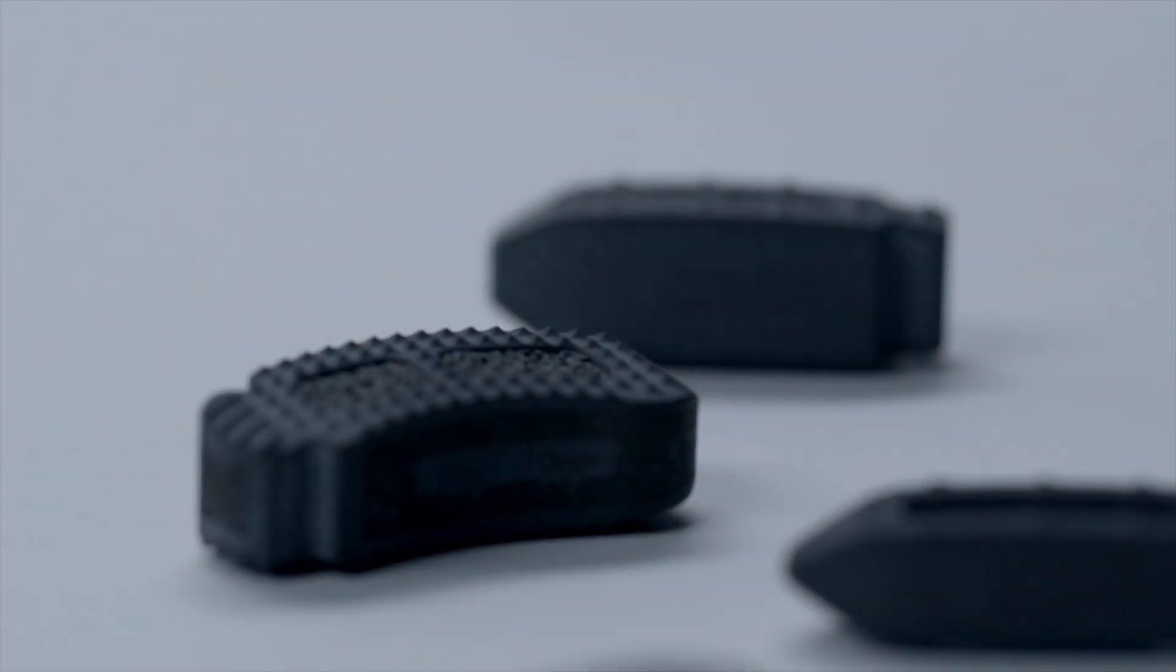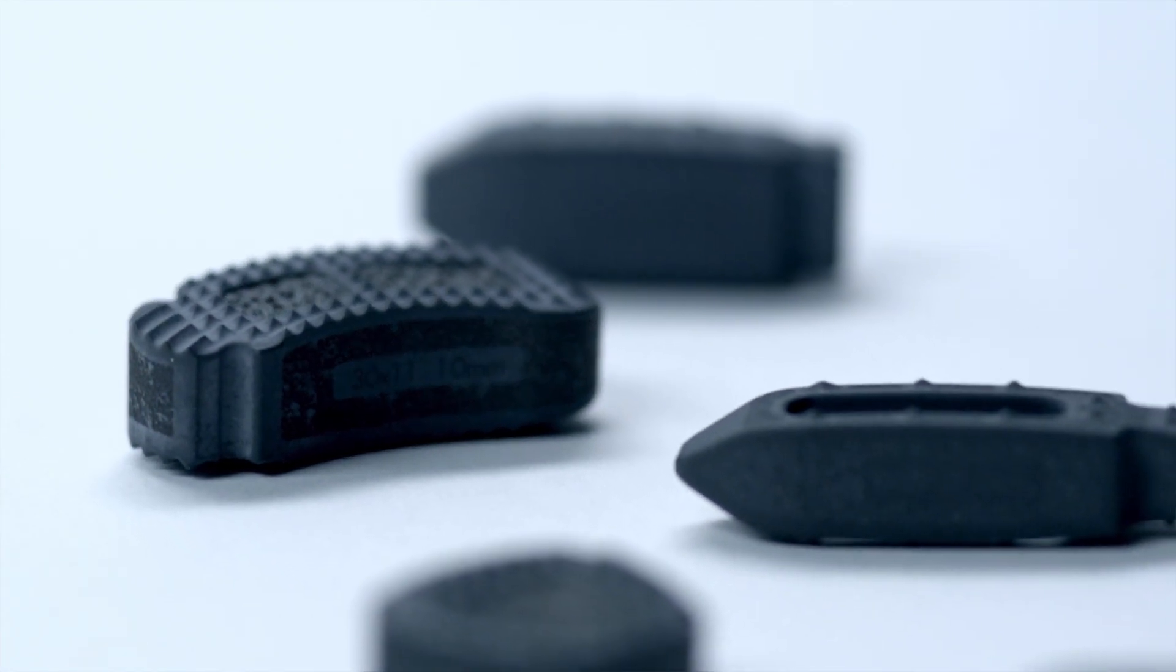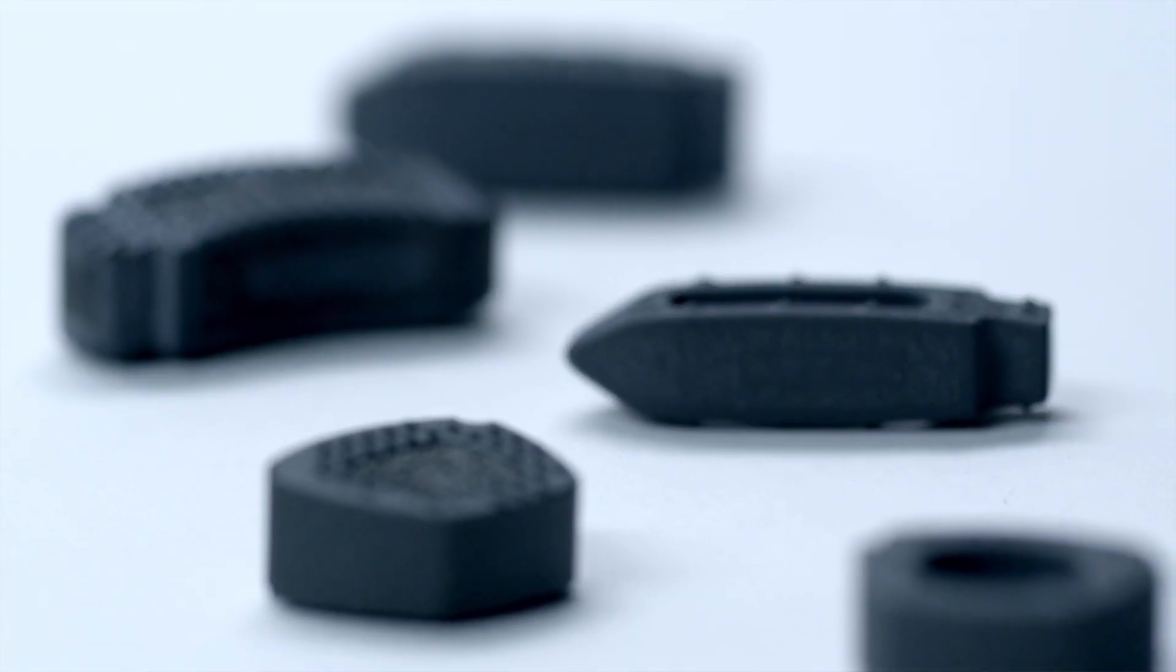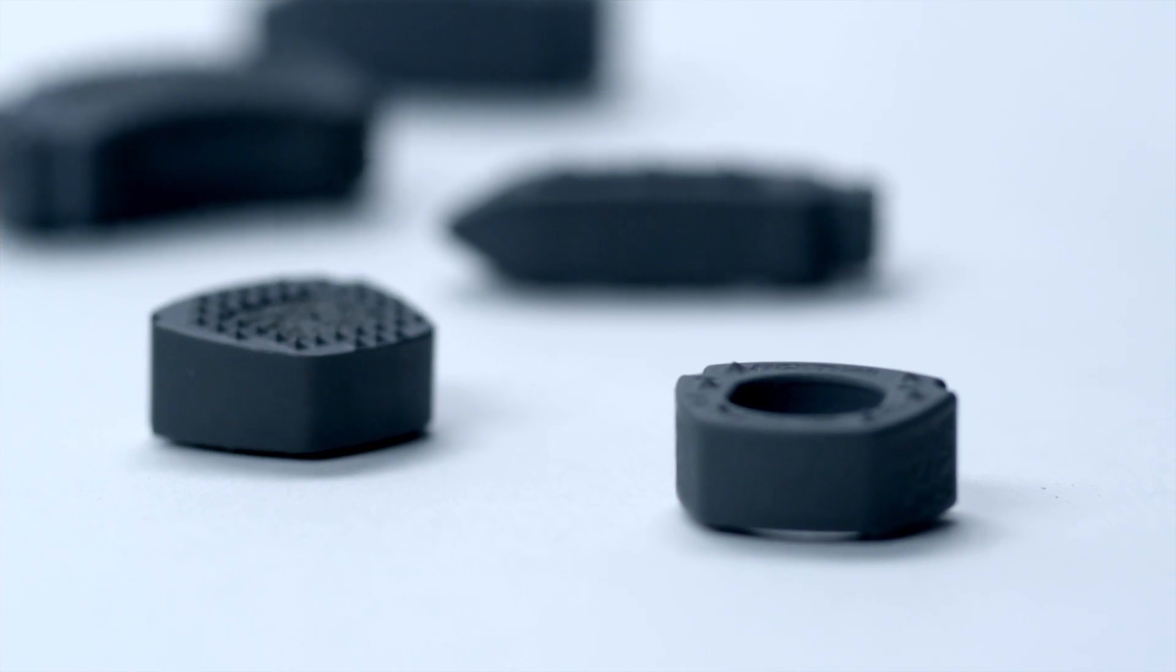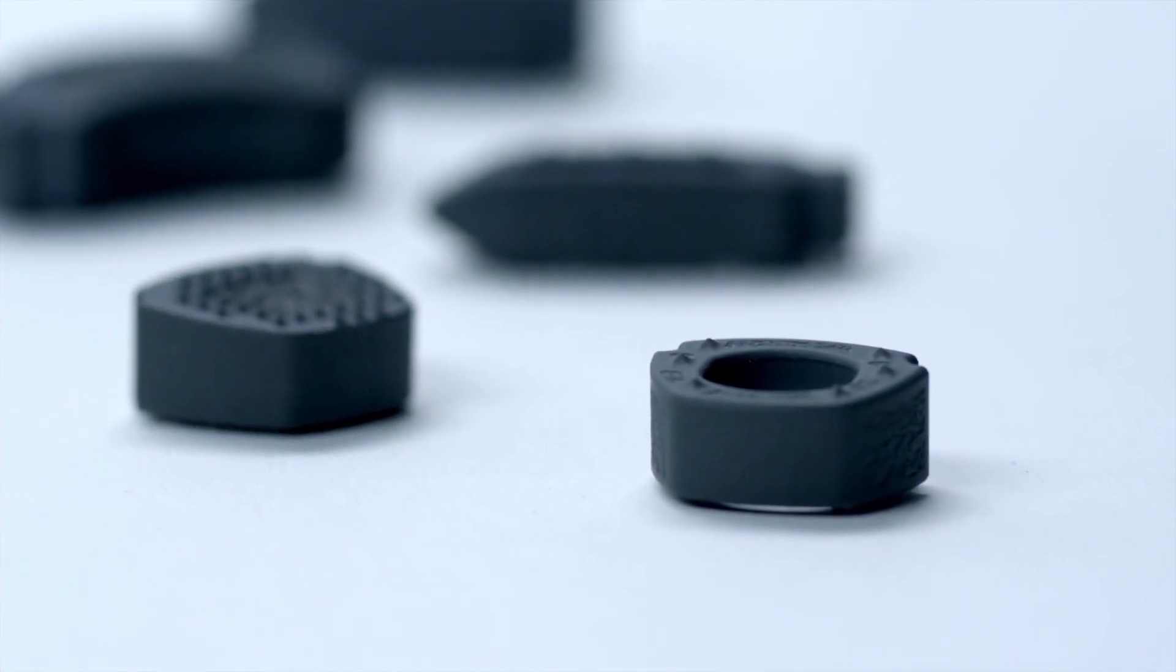This material is Amedica's silicon nitride and it's not just a vision, it's a reality with a full line of spine products already in use today.